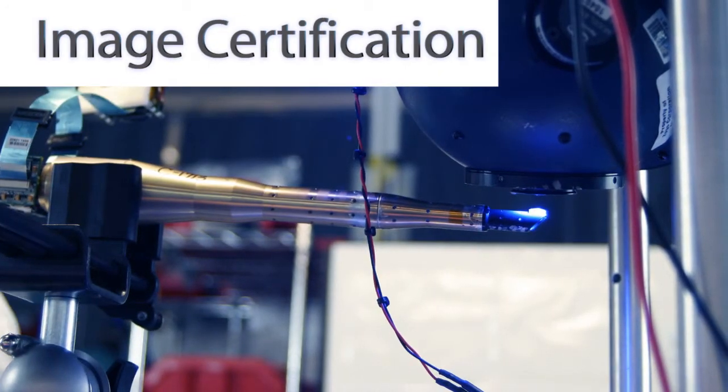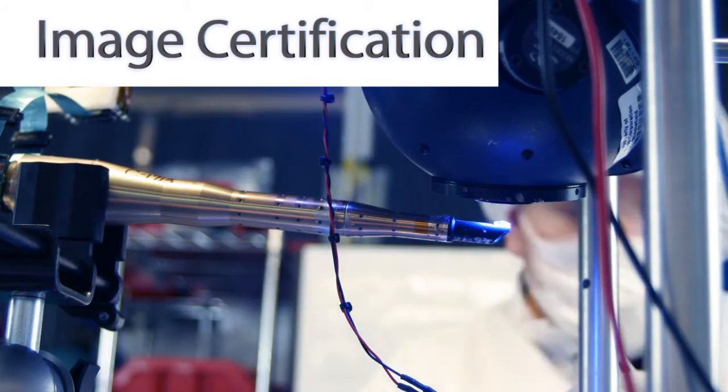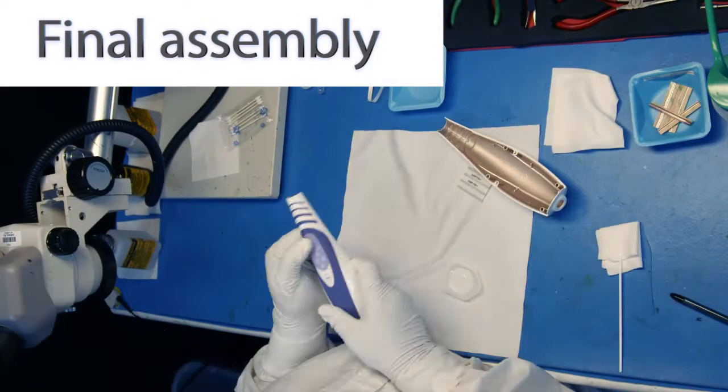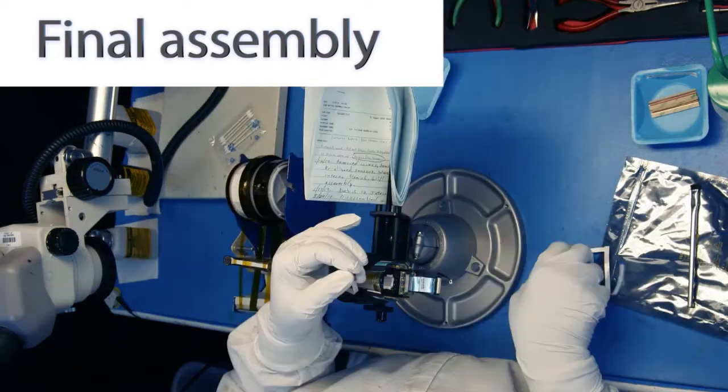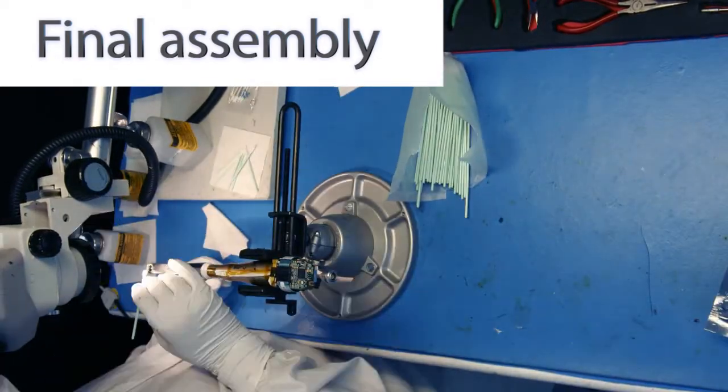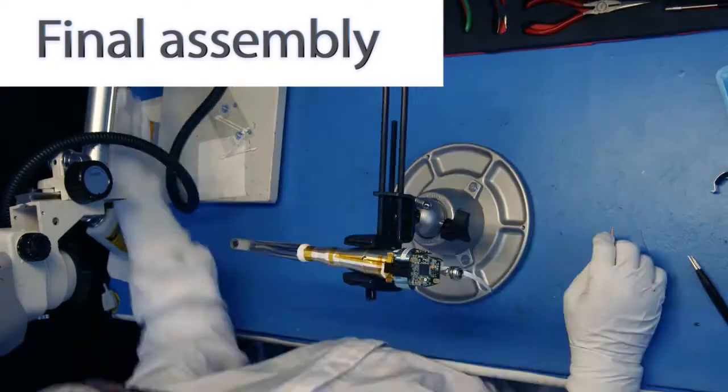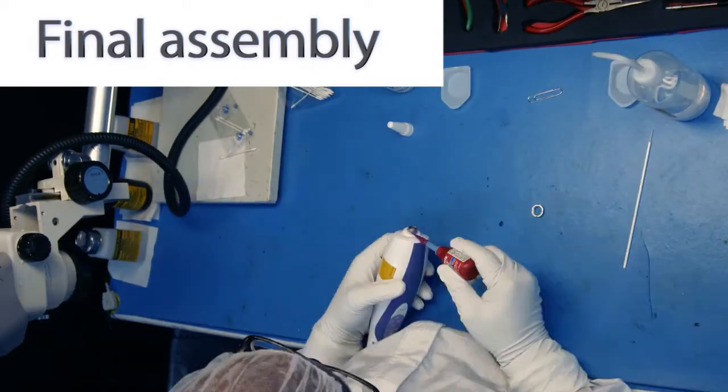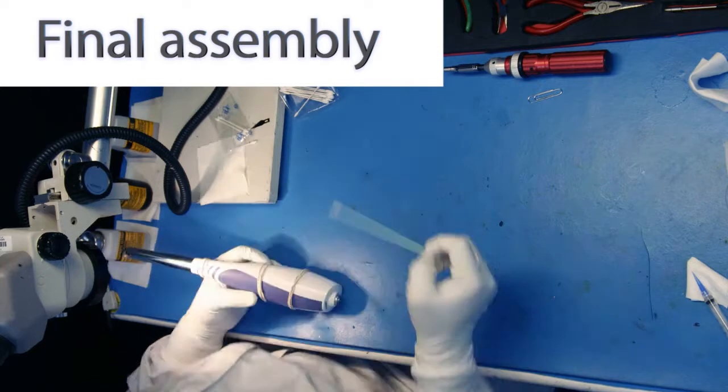Image certification validates the full assembly. Final assembly seals the delicate electro-optical components into an autoclave-compatible waterproof case, then ties them to the seamless operator control buttons and integrates the sensors to output plugs, ready for the data processor.